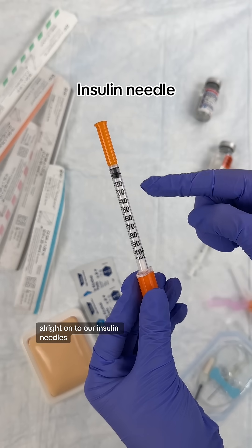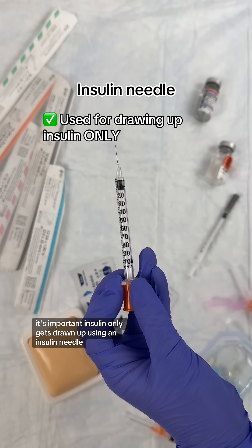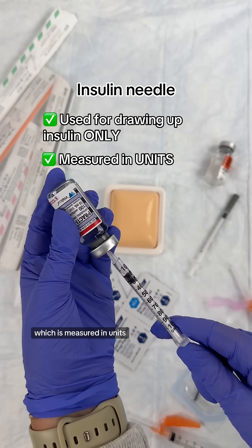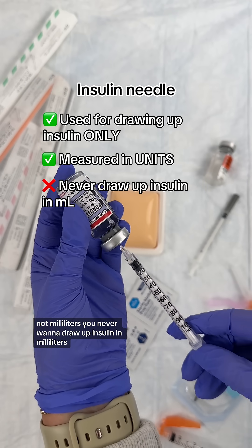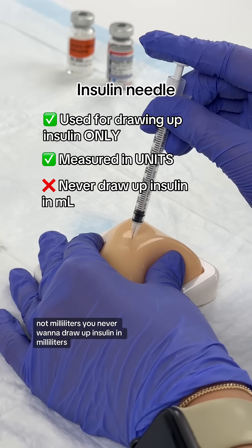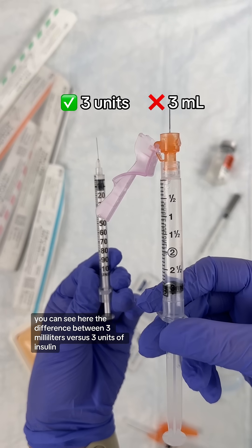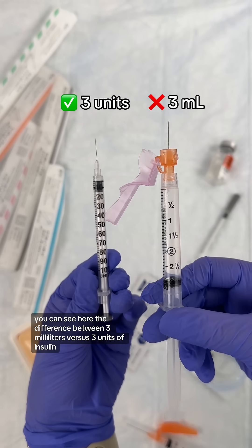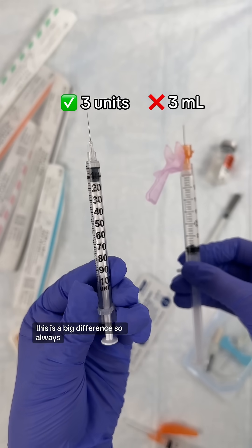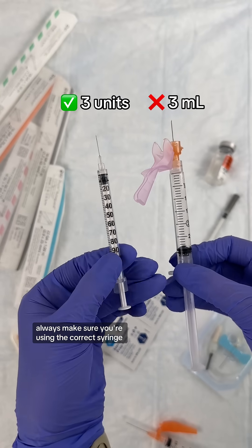On to our insulin needles. It's important insulin only gets drawn up using an insulin needle, which is measured in units, not milliliters. You never want to draw up insulin in milliliters. You can see here the difference between three milliliters versus three units of insulin — this is a big difference. So always make sure you're using the correct syringe.